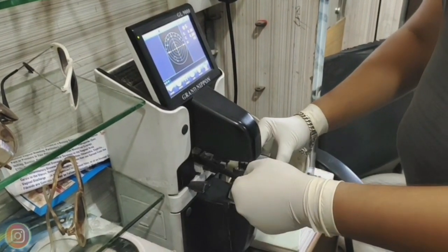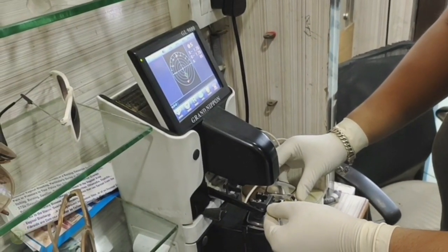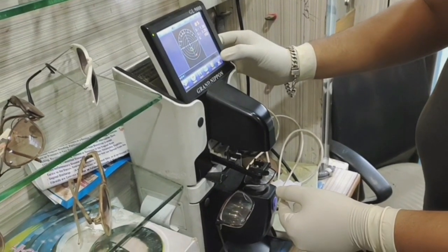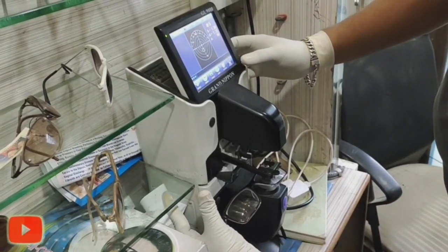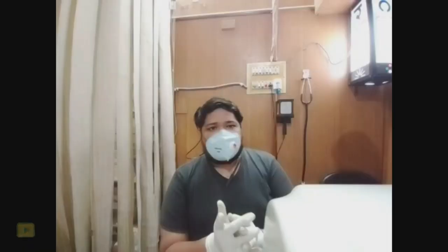The lensometer — I am using the exact number in the lensometer. First the left eye, then the right eye, I am using them one by one to get the exact number. In the printout, the lensometer shows the exact number.